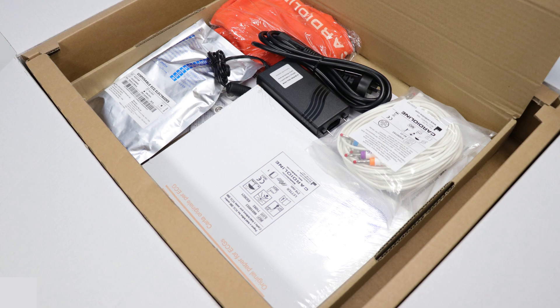In there you will find your accessories for the ECG: a power cable for Australian power, a set of AHA plug-style cables, one full packet of CardioLine ECG Z-fold paper, a sample packet of ECG electrodes, an orange protective case, and a set of alligator clips. These are all inclusive with the unit purchase.